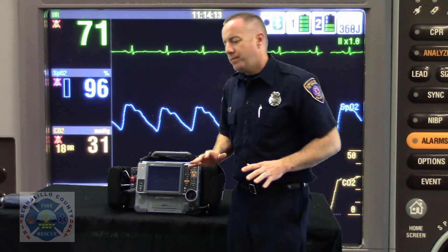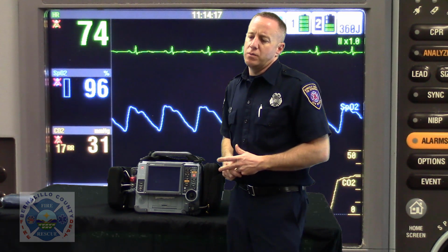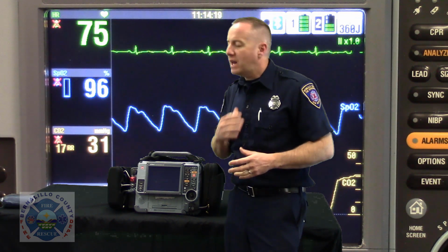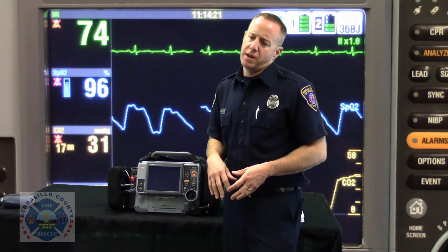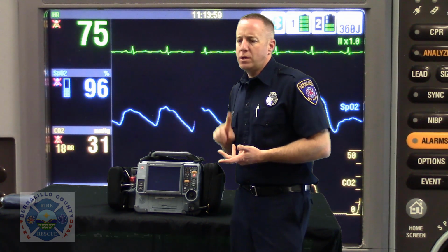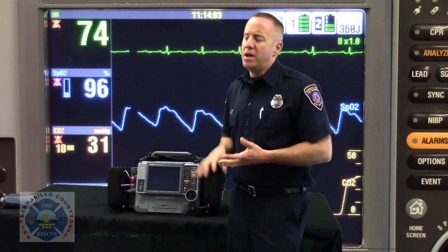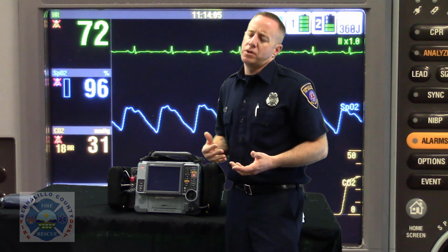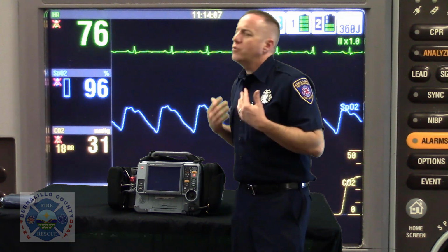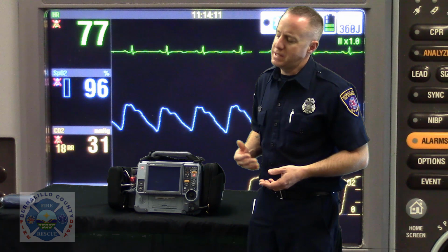Now that we've said that, there are some obvious things that would interfere with that. If a patient can't have IVs on one side of their body because of a mastectomy or a fracture or some other medical scenario, you're going to have to alter your assessment technique. But most people will be able to follow this sort of rhythmic pattern of how you set them up.